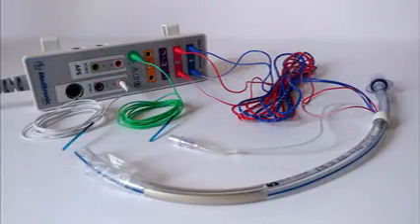Finally, to connect the electrodes to the Neurovision interface box, simply follow the standard color pattern. Take the red and blue and reach out the connectors to their respective ports.